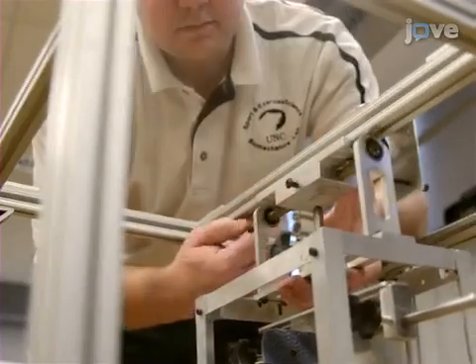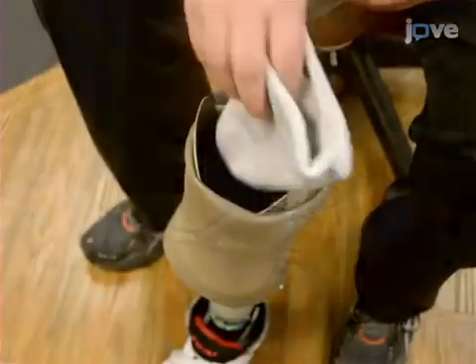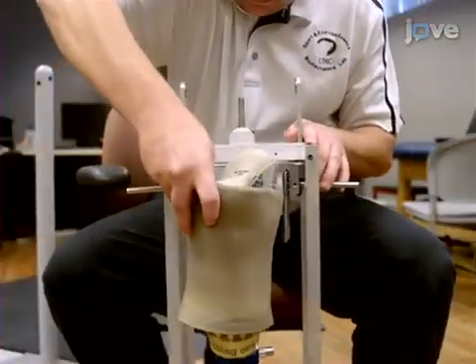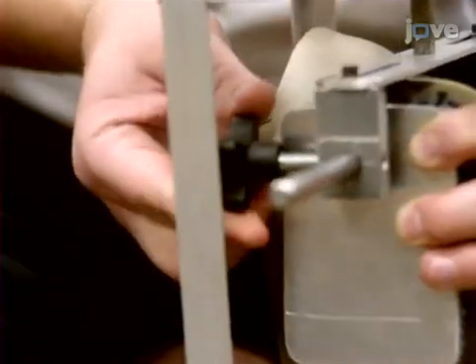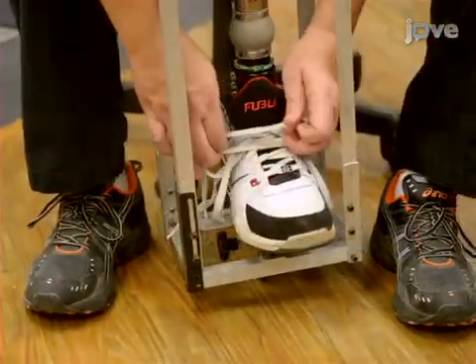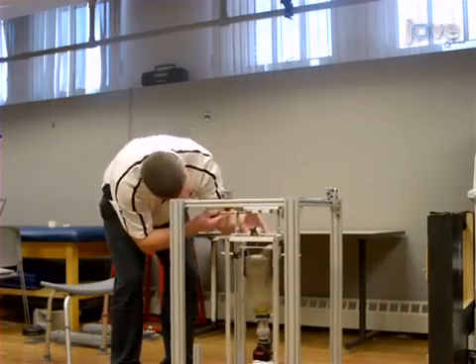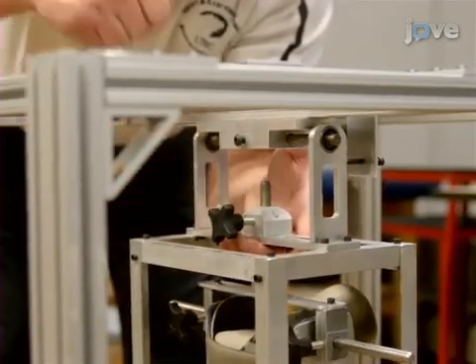Remove the inner cage from the oscillation rack by removing the axle. Place the subject's liner and ply within the socket of the prosthesis. Then, securely position the prosthesis with the shoe still on within the inner oscillation cage, using a Velcro strap to secure the foot of the prosthesis on the distal plate of the cage. Next, reposition the inner cage within the oscillation rack by securing the axle.